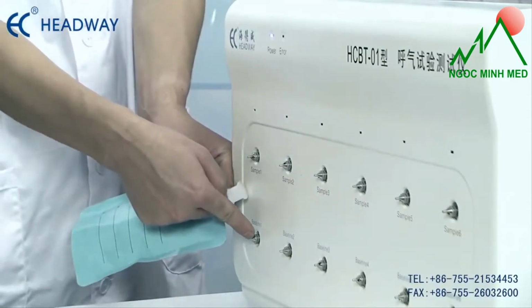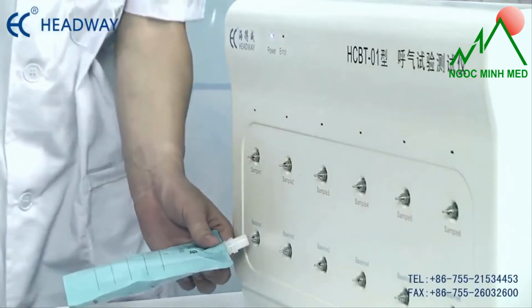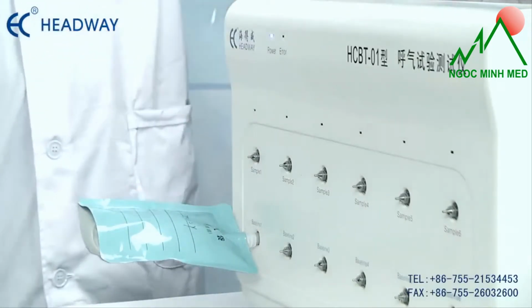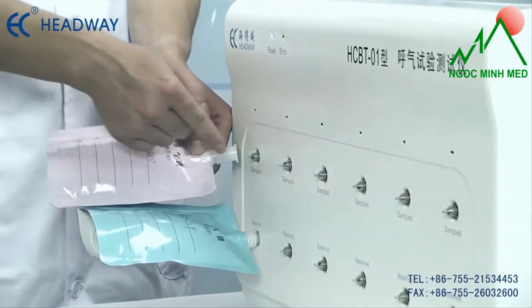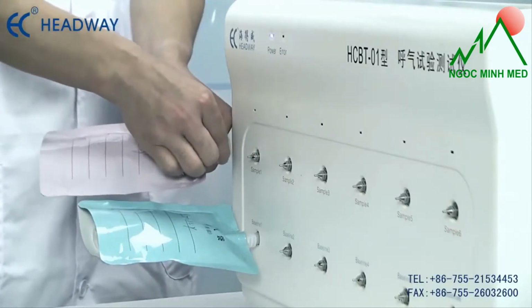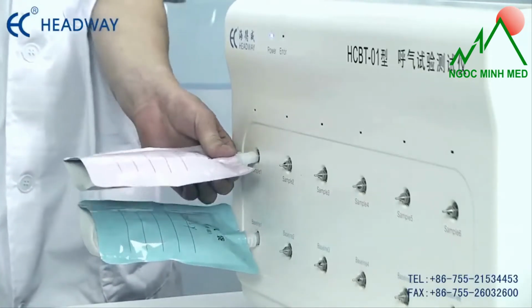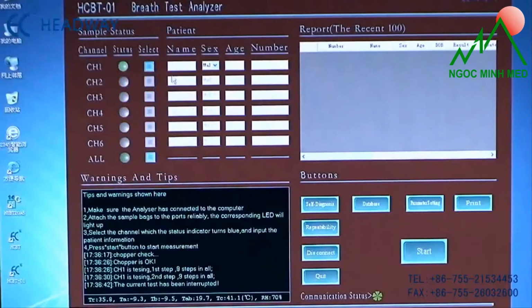Sample measuring. 1. Place the initial breath sample bag into the baseline tunnel, and the post-dose breath sample bag into the sample tunnel. Then the sample tunnel status indicator changes from gray to blue. All samples are correctly placed.